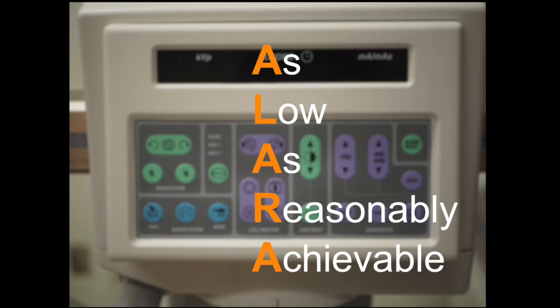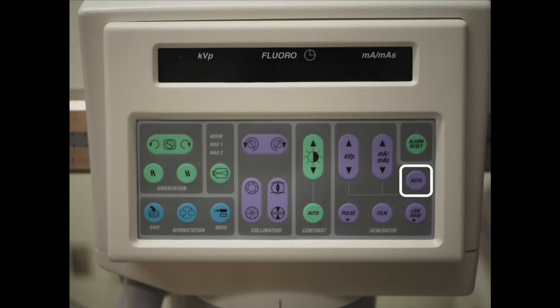ALARA is a standard in radiation safety, aiming to minimize radiation exposure to both the patient and the providers in the room. By selecting the Auto button for automatic exposure mode, the system calculates the needed voltage and amps for an optimized image. This helps improve the image quality while minimizing the radiation dose. The Auto mode is usually adequate for bronchoscopy.